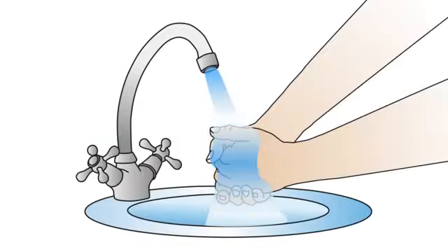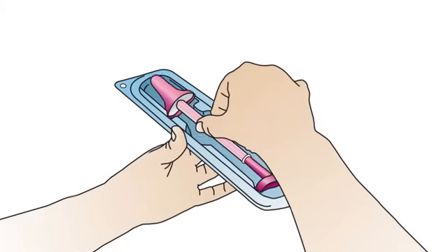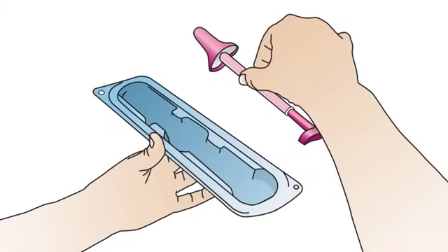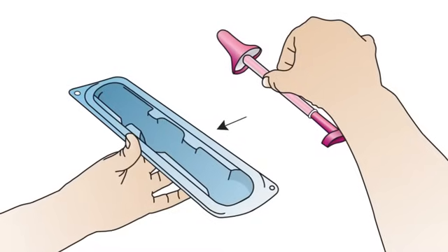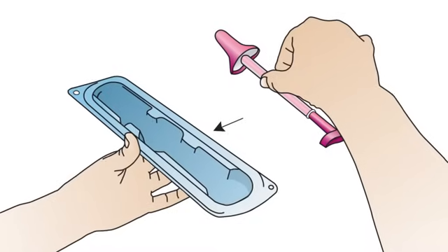Wash your hands before usage. Remove the Evelyn brush from the packaging. Do not throw the packaging away, as it is necessary for sending the Evelyn brush to the laboratory after usage.